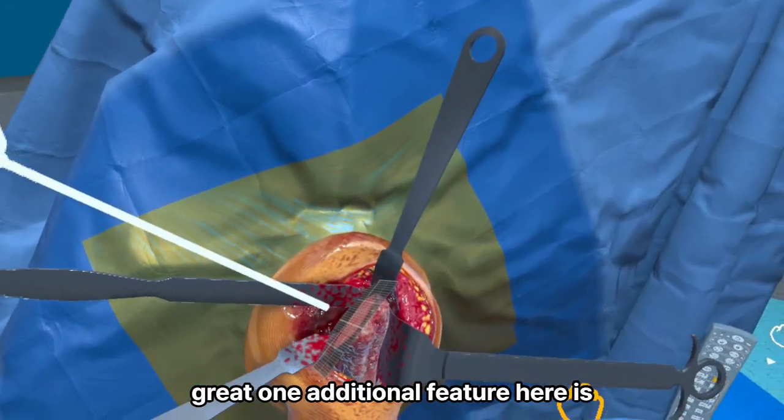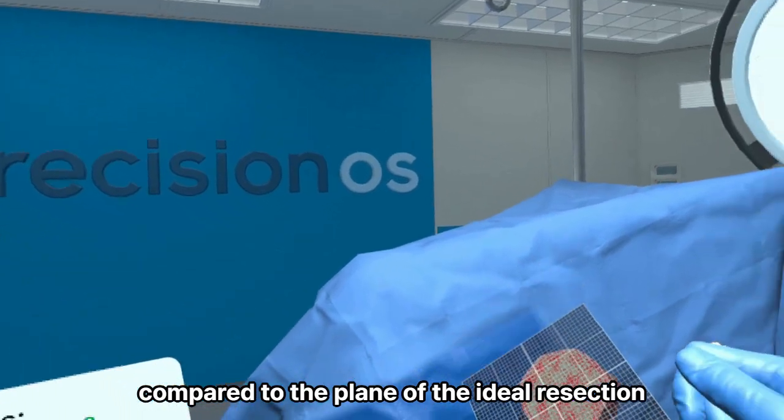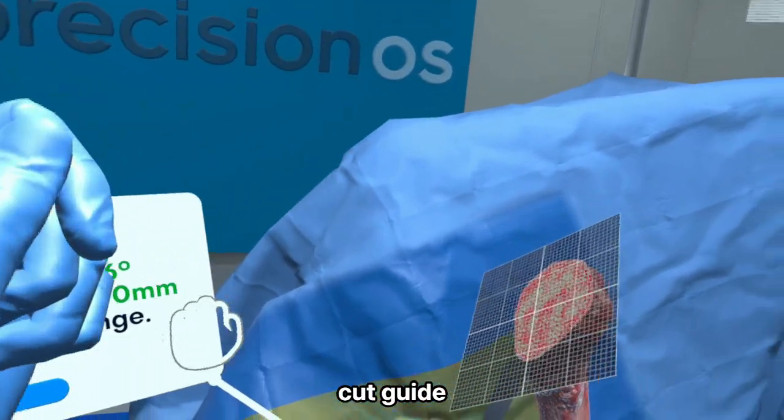Great. One additional feature here is I can still pull the bones out of the body and get a visual of how I've done compared to the plane of the ideal resection cut guide.